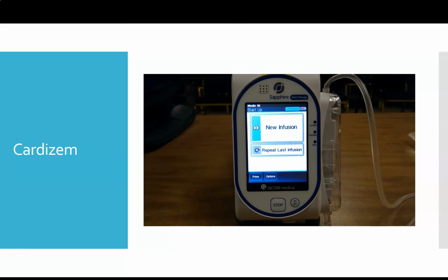So when you're on the phone getting your med command orders for Cardizem for your rapid AFib patient, it's really good to discuss both the order for the bolus and the infusion at the same time. For the purpose of this scenario, we got an order for a 10 milligram bolus of Cardizem, and we're going to do an infusion at 5 milligrams an hour. And you're going to see we're going to set all of this up at once.